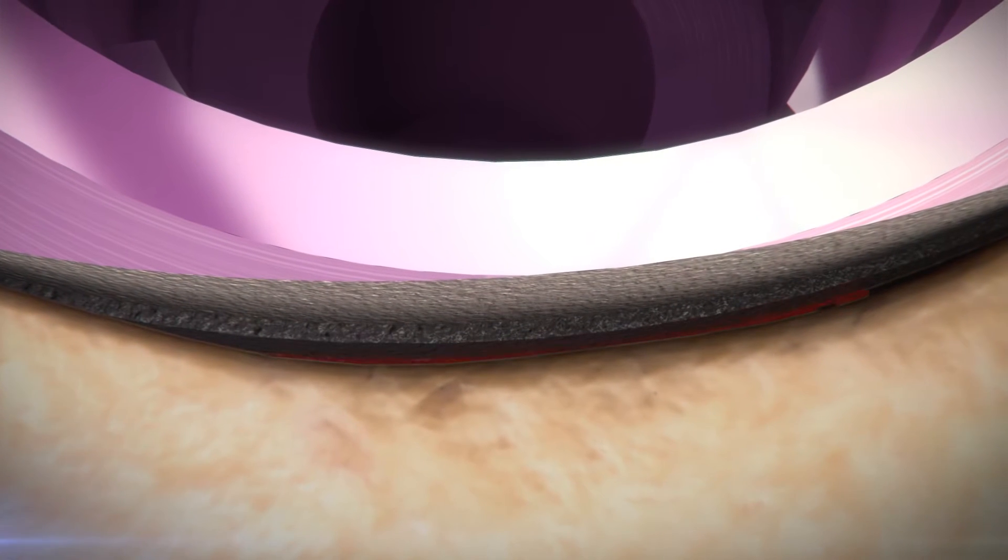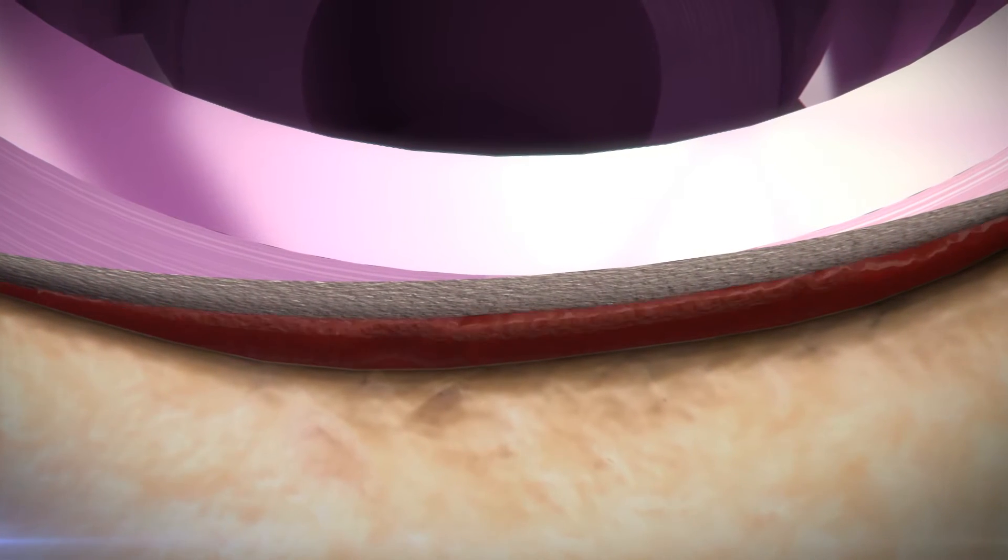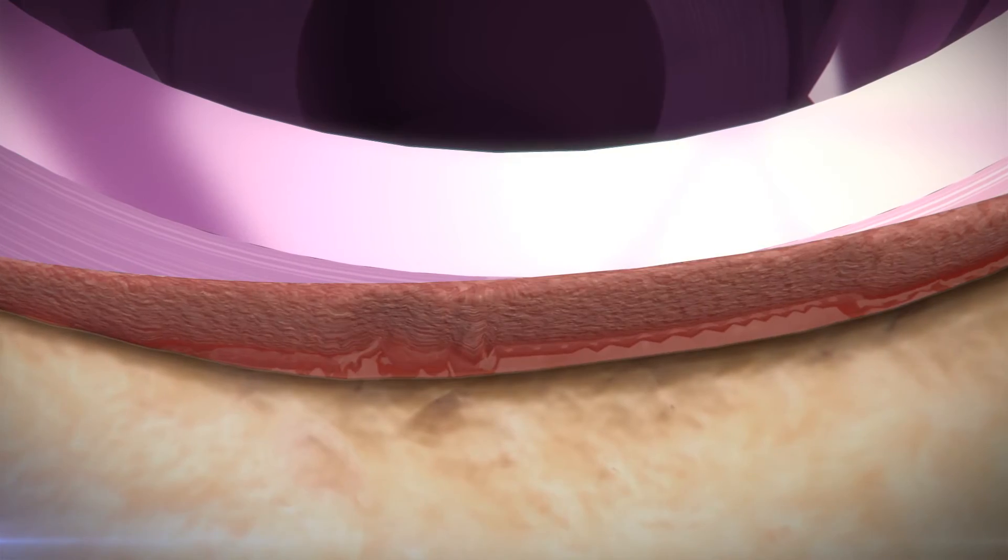The narrow chambers allow for blood pooling and blood clot formation immediately after placement. This is an ideal environment for maintaining cortical bone vitality and promoting new bone growth.